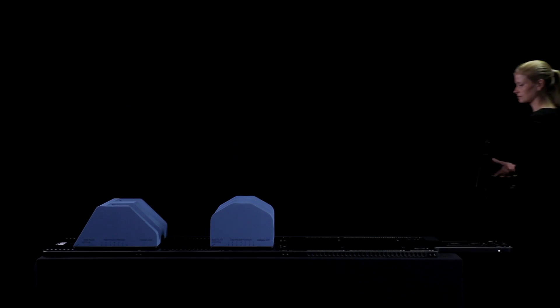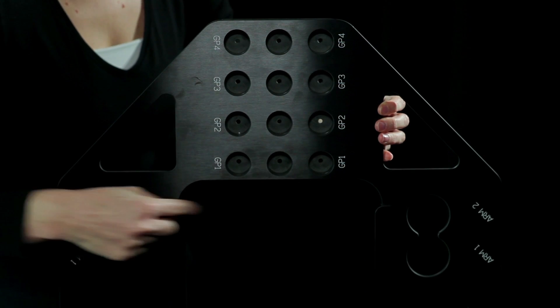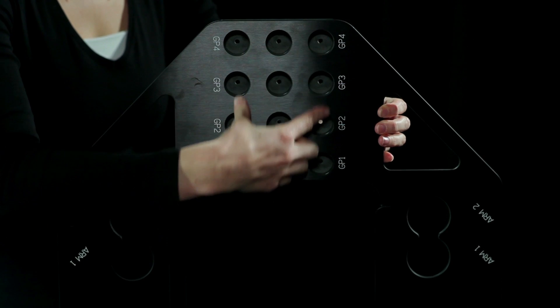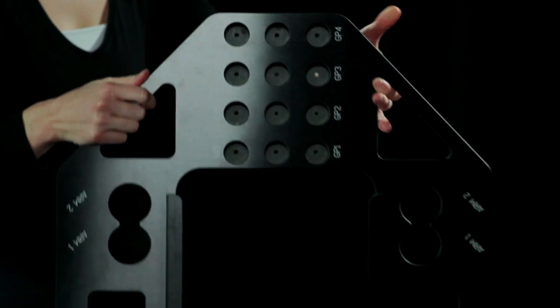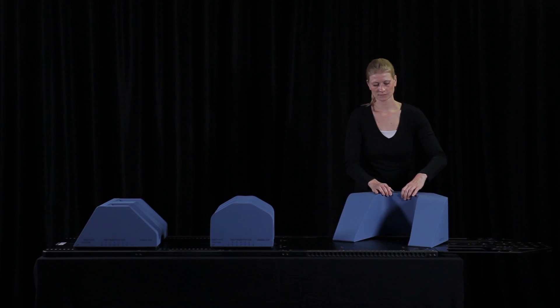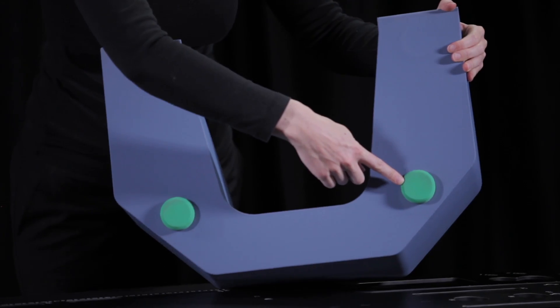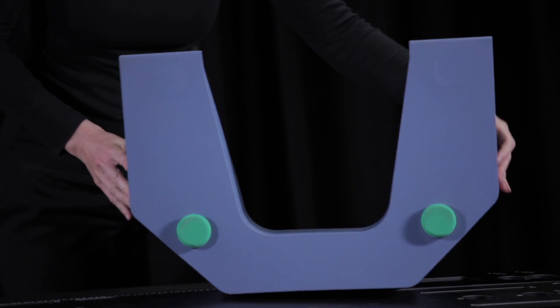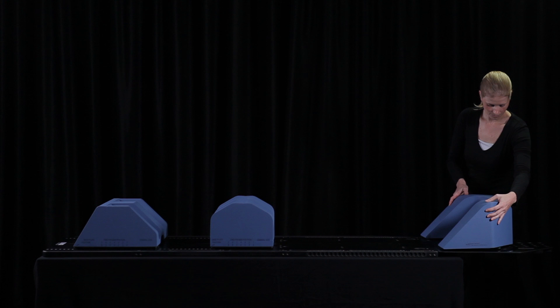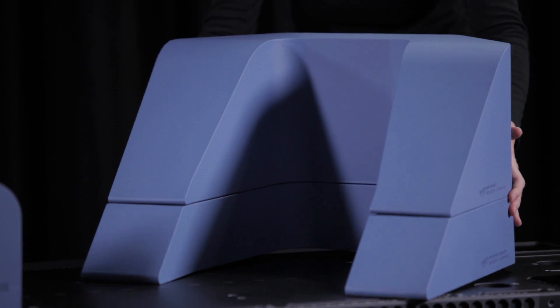In order to position the arms, the armrest support plate has to be attached to the cranial end of the baseplate. The support plate has large holes to accommodate the armrest cushion and smaller holes to position the grip poles. The armrest support plate slides over the cranial end of the baseplate without the need of any tools. The armrest cushion has two positioning bosses to attach it to the armrest support plate. When necessary, the armrest can be raised with an elevation cushion. Position the armrest on top of the elevation cushion and attach it to the support plate.